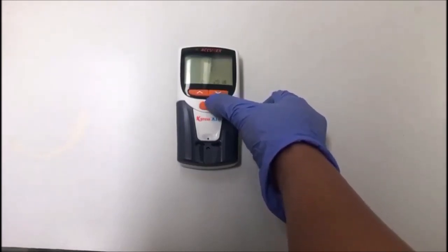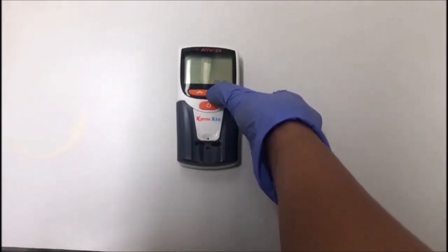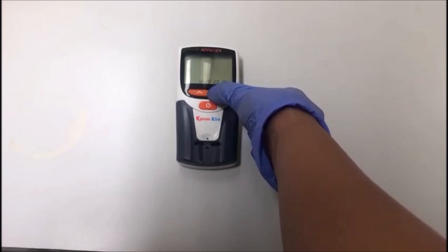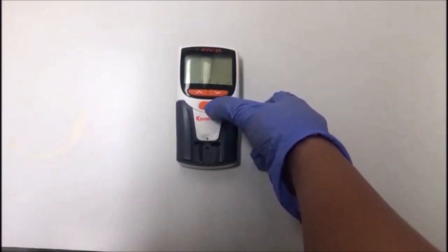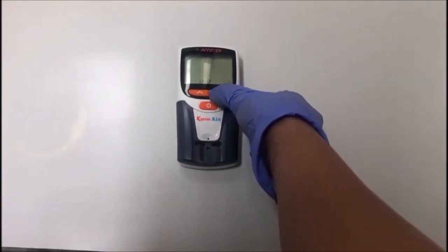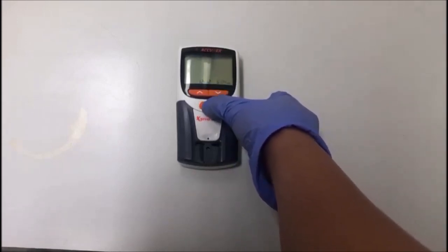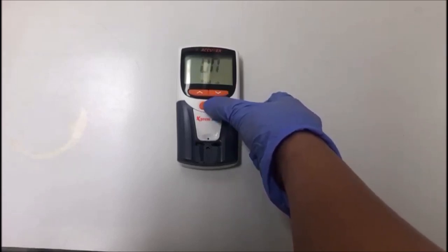The first setting is 12 hours or 24 hours — select one. Then is the year setting, then the month setting, and then the date. Next is the time setting. Audio can be on or off; put it on.